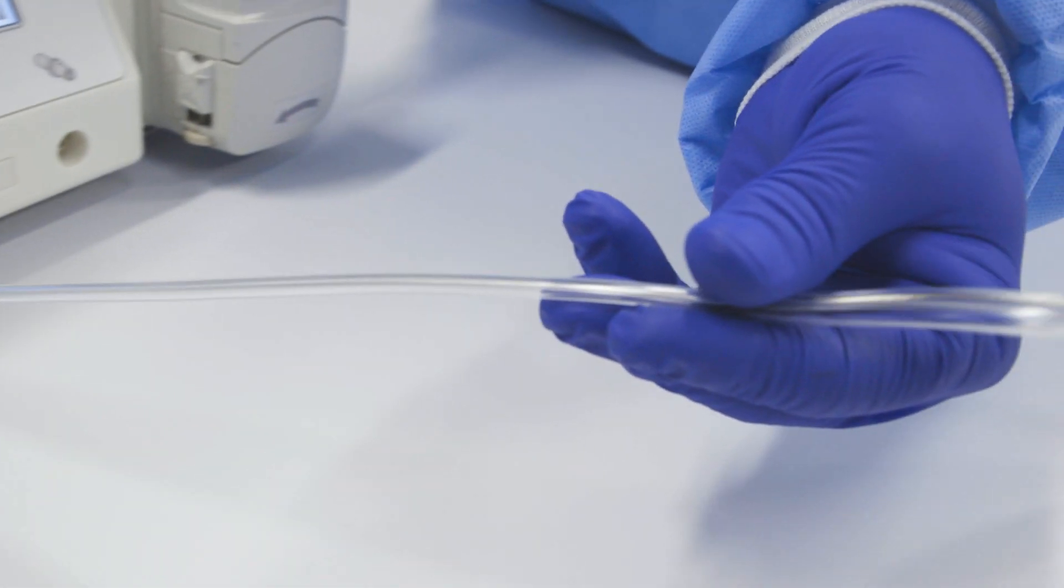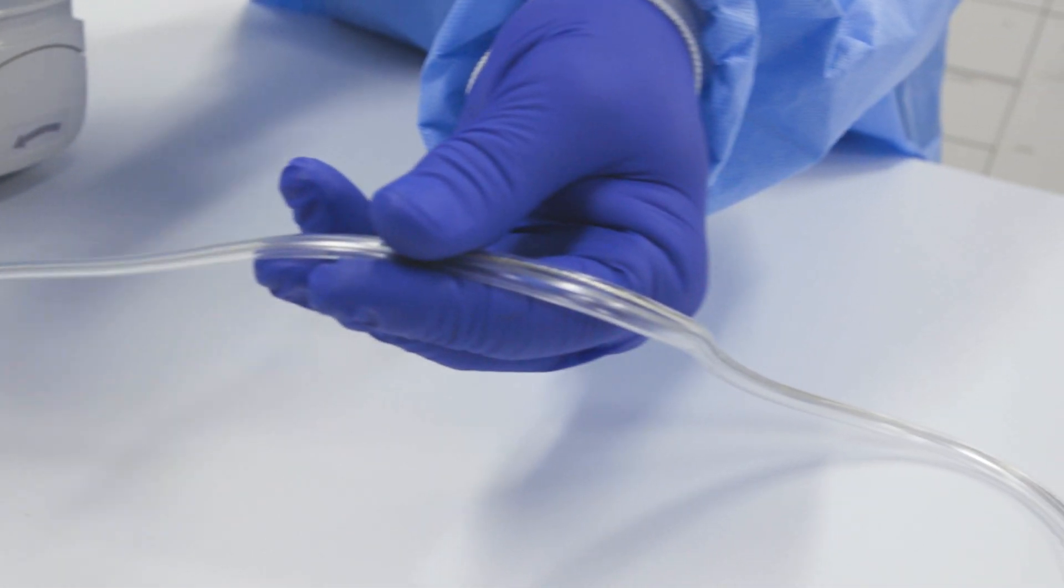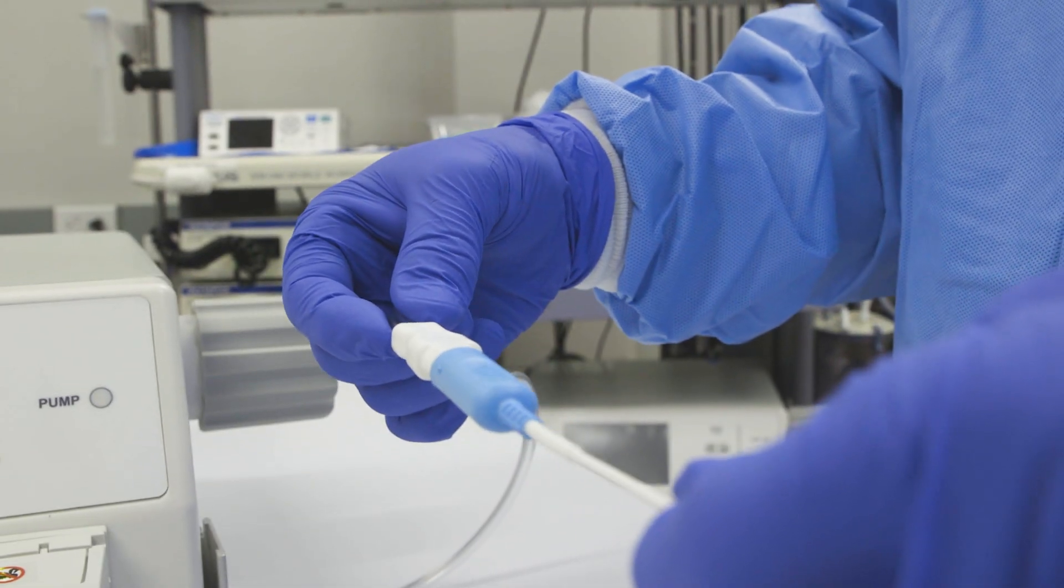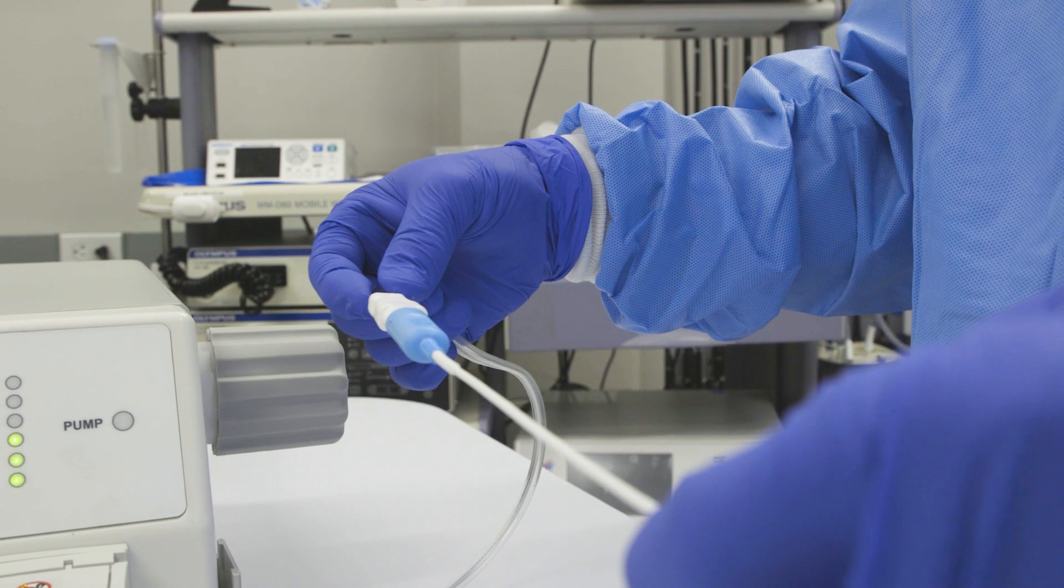Visually inspect the ArcConnect for any functional abnormality like torn insulation, punctures, or damage. If any irregularities are noted, contact Steris customer service.